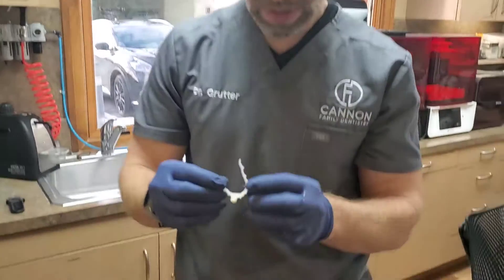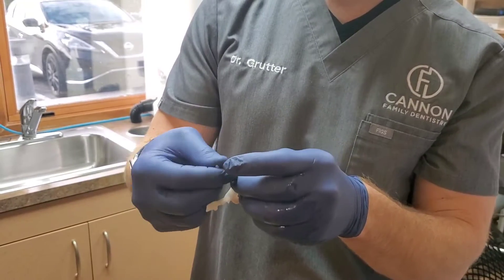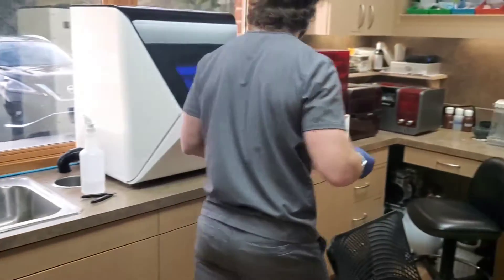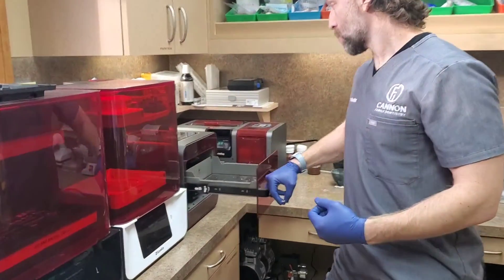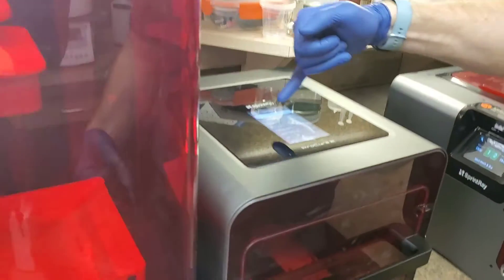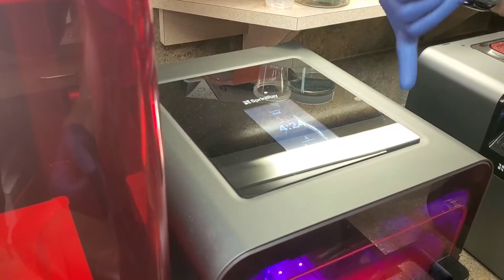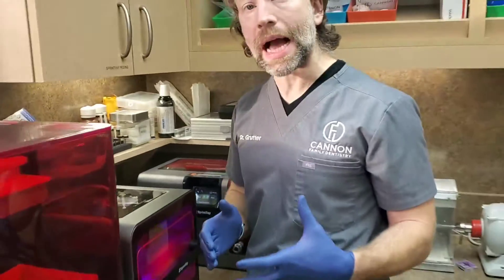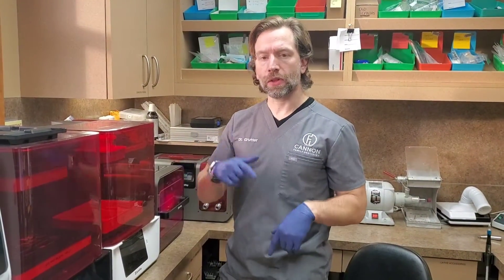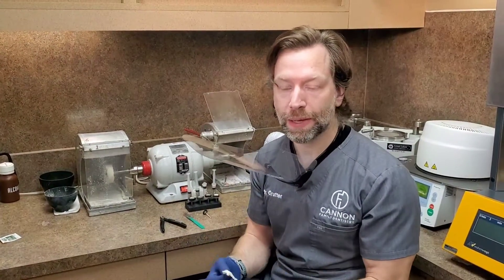That's pretty good — fairly a matte finish, not real glossy. There are a few areas inside, but pretty matte finish — we've got most all the excess off and we're good to go. Now I'm going to bring it over to the ProCure 2, set it right down in the middle so we can use bolt mode — Sprint Ray Onyx, center start. We want to use bolt mode, so in four and a half minutes it should be cured and ready to go. If in any doubt, cure again. The second half of the video will be actually showing you how to polish it.